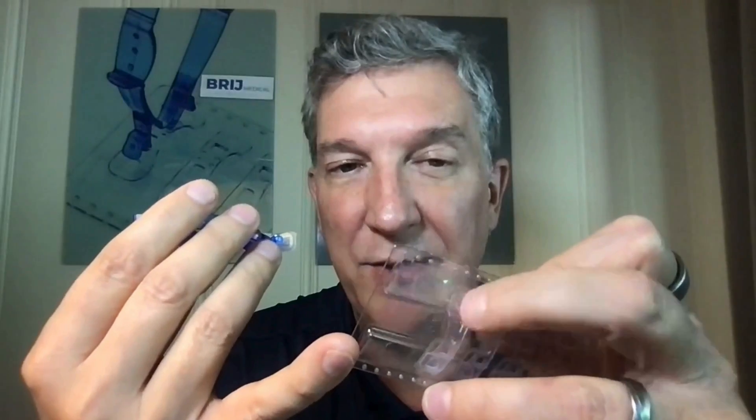The applicator has these little pins, and what you do is you slide it in. It clicks. You roll it off. And then this is a special part of the innovation — these little flaps in the peel liner here that allow that to come up. They create a micro air bubble that then releases it from the plastic. Otherwise, you couldn't lift the thing off at all. And then to apply, think of it like loading it. You squeeze, and now it's ready to go.